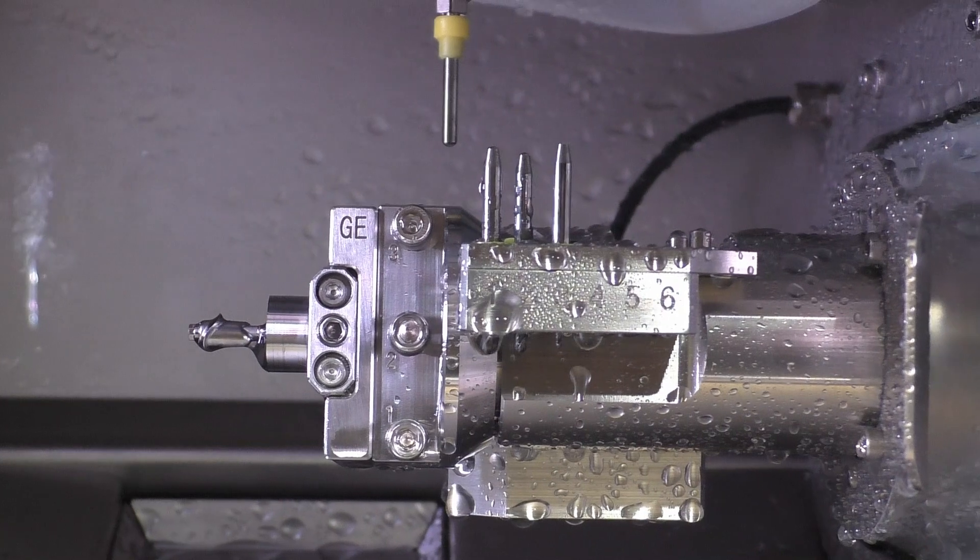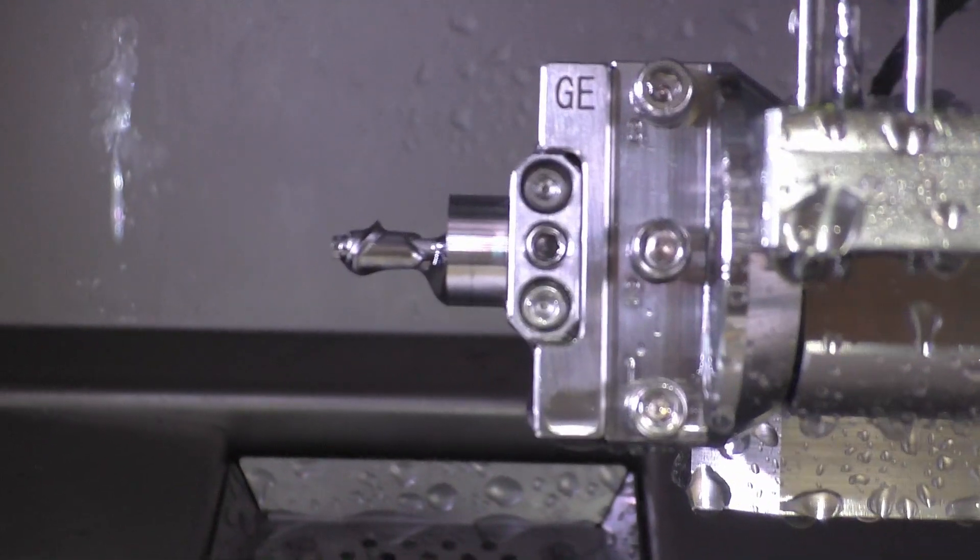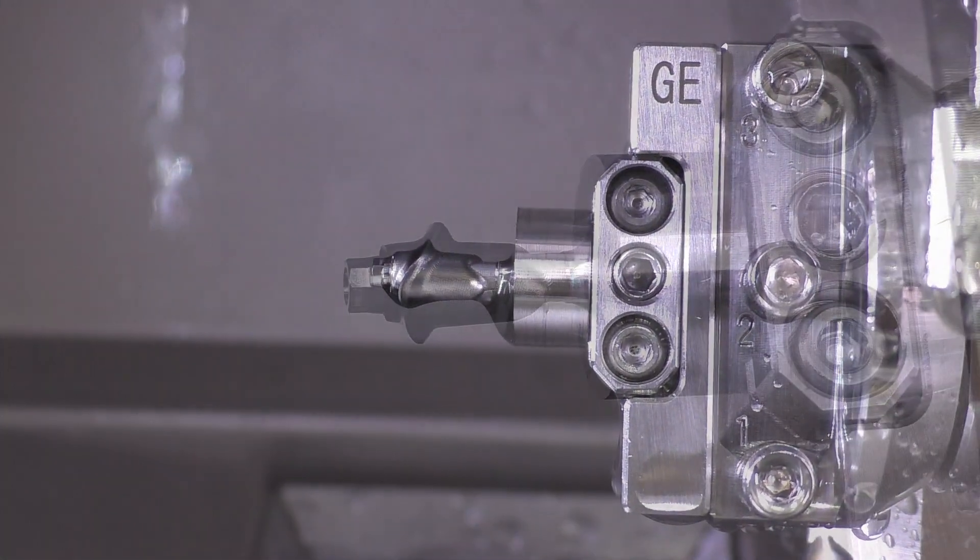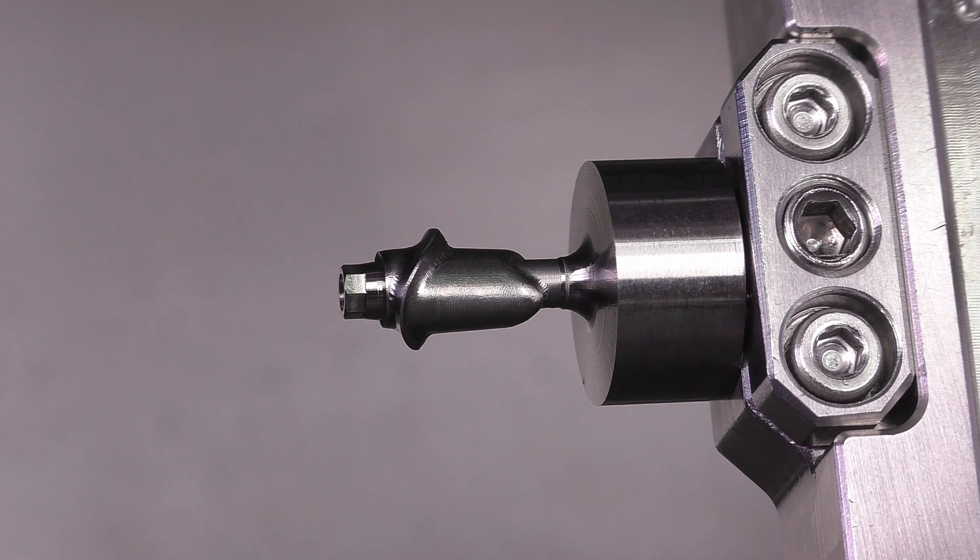The result is a superb combination of a secure biomechanical connection and an ideal support line form for the superstructure.